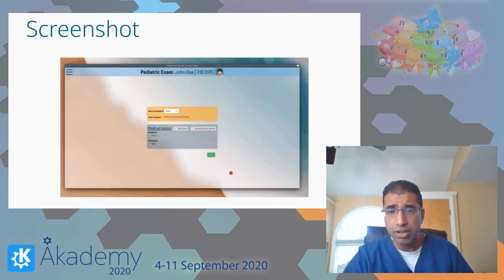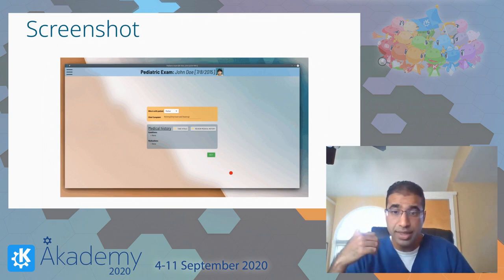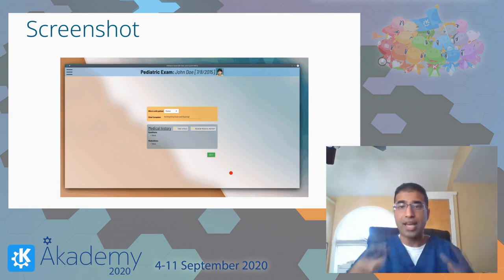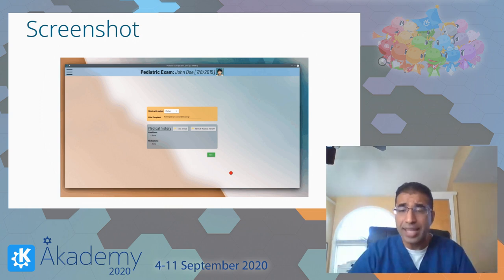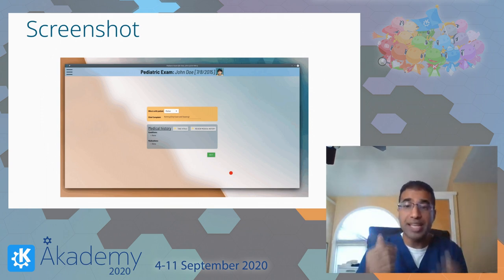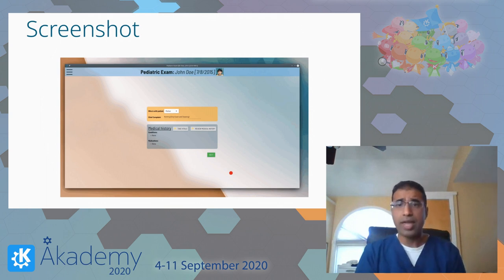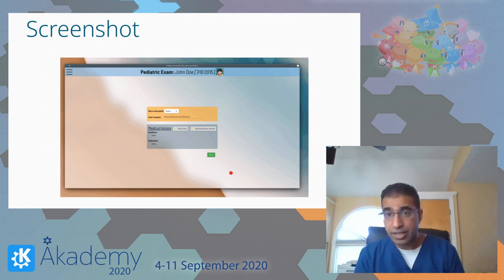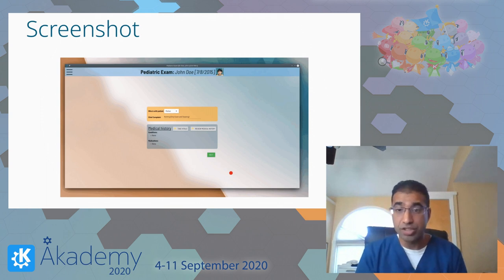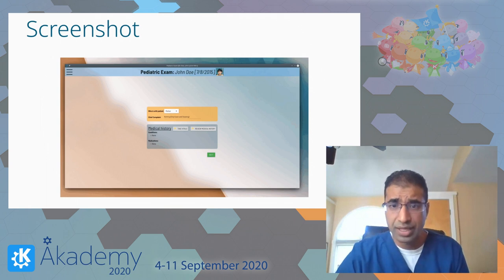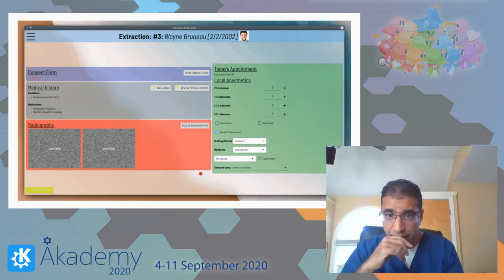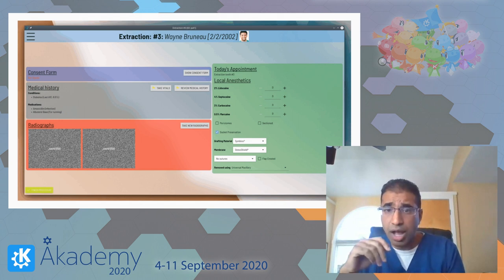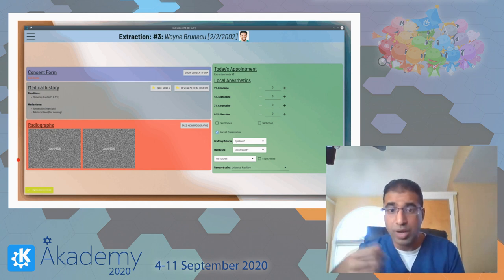As an example of how it looks: this is the pediatric exam. Because I'm treating a child, you don't see any options for, say, placing an implant — that makes zero sense. Why give the doctor nonsensical options? Instead, you put what actually makes sense and remind the doctor of what to do — like, did the kid present with their mother, father, or someone else? What's the chief complaint? These are all missing in current dental EHRs. You can also integrate the medical history, check vitals at each appointment, and do any screens needed before starting the procedure.